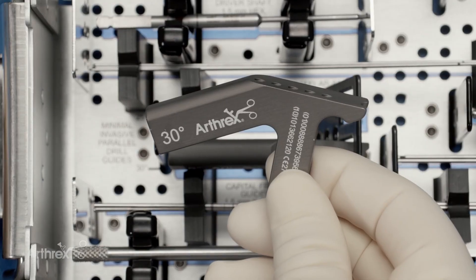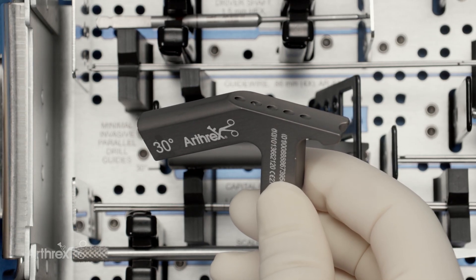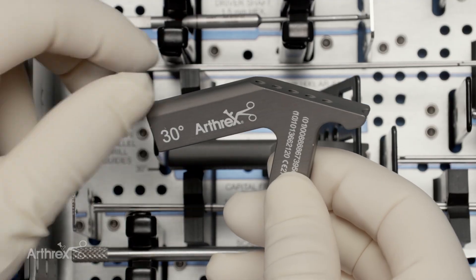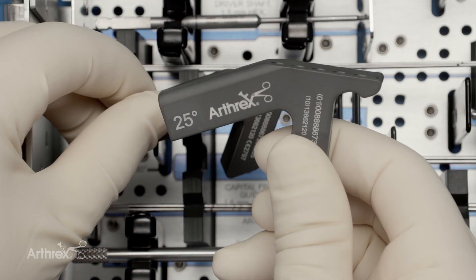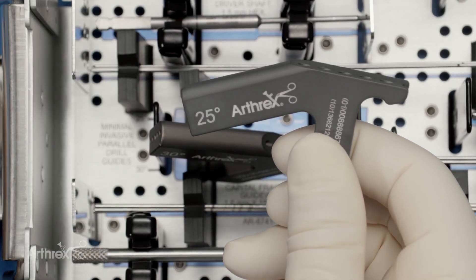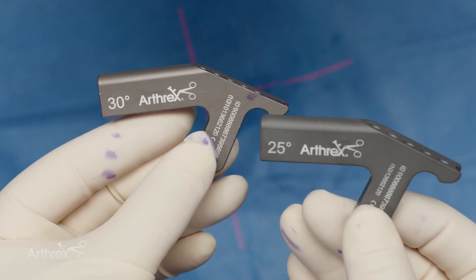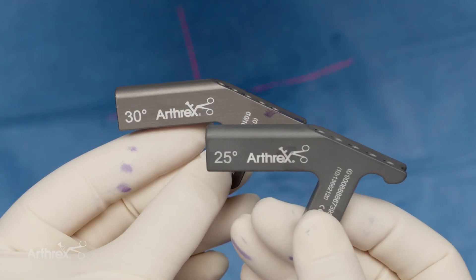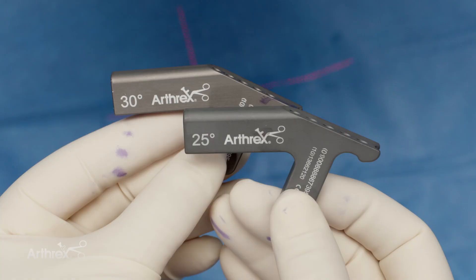There's a 30-degree option, which has five holes that can accommodate K-wires for the 3.5 or the 4.0 millimeter screw. We also see its sibling — the 25-degree option — used in conjunction with the shifting device, which can be placed on the medial skin. The 30 and 25-degree angles refer to the declination or inclination that the K-wires are going to make against the metatarsal.